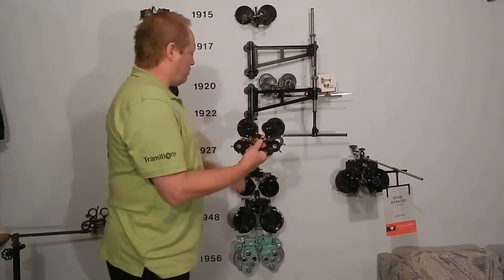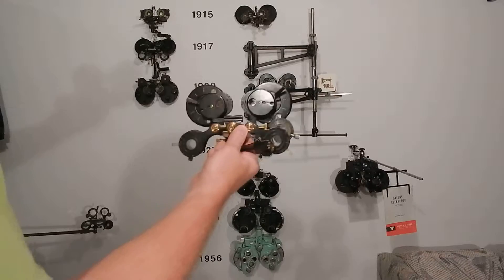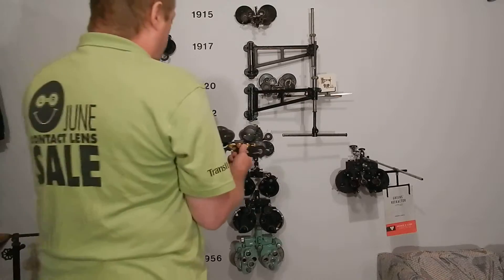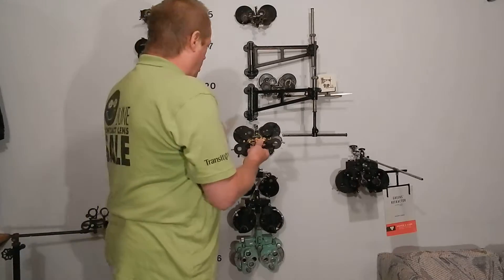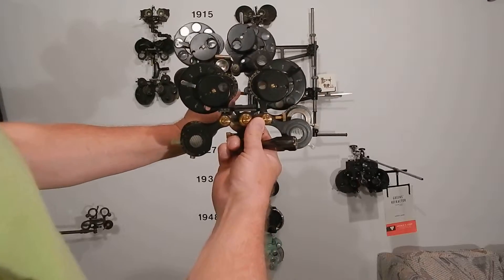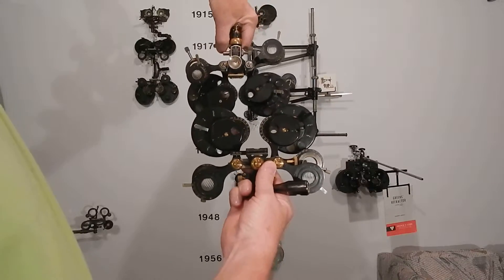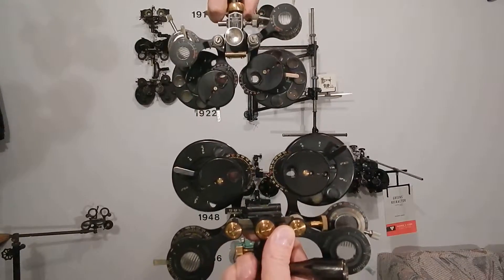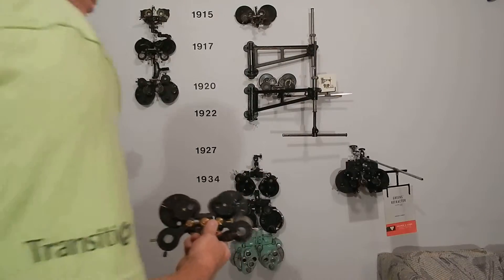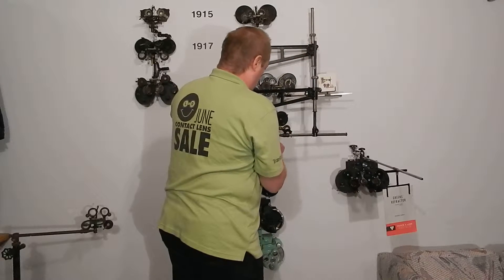In 1925 American Optical bought de Zeng — they bought the design, they bought the whole company. Henry de Zeng was from upstate New York, near Buffalo, and the factory that made these was in Buffalo. When AO bought them, they left the factory in Buffalo. AO took the same design with very little difference but turned it upside down — this is the first of the de Zeng line to hang from the top instead of being supported from the bottom.